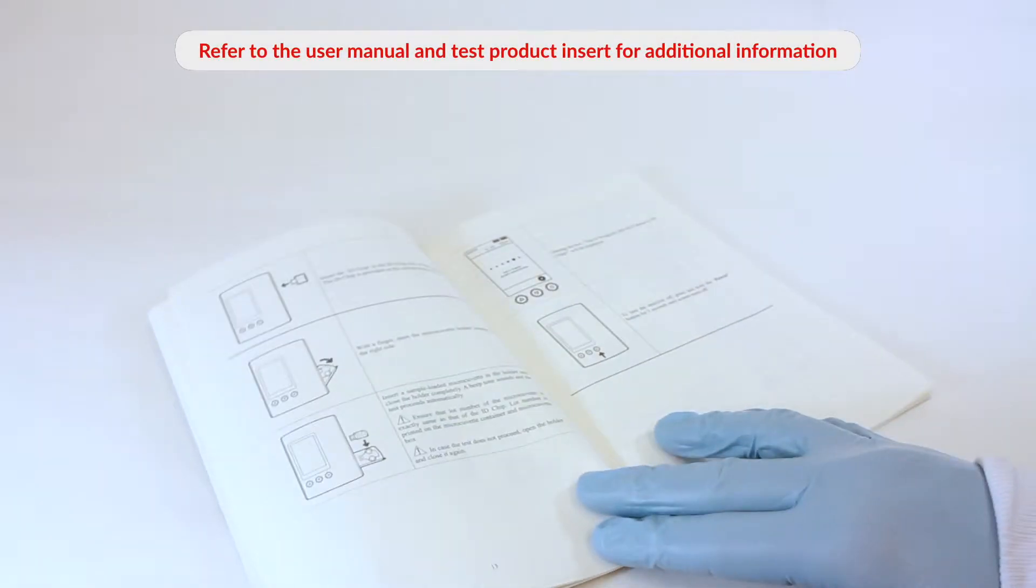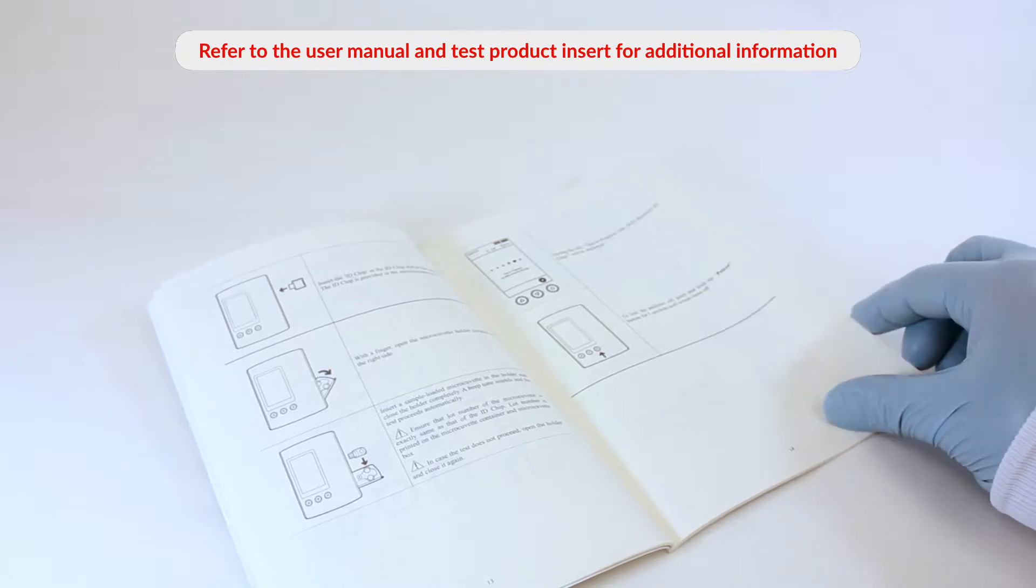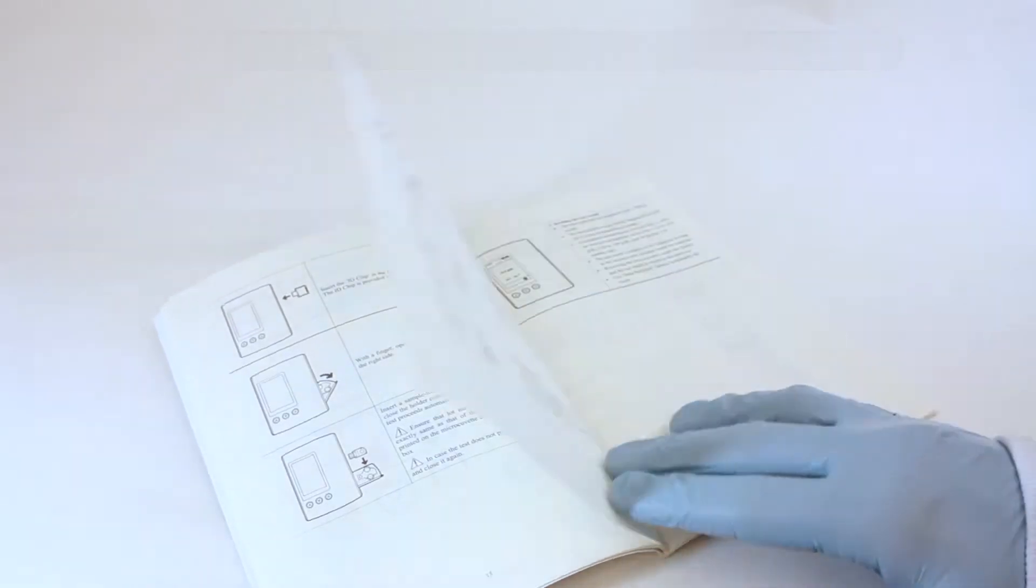Refer to the user manual and test product insert for additional information before testing for the first time.